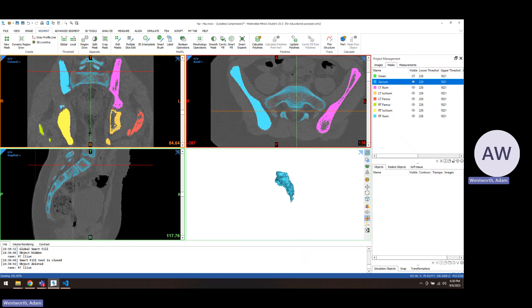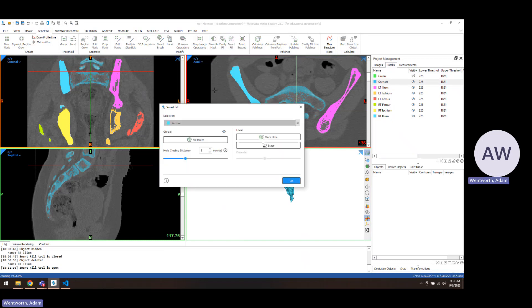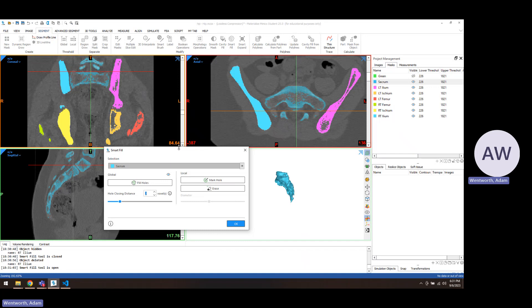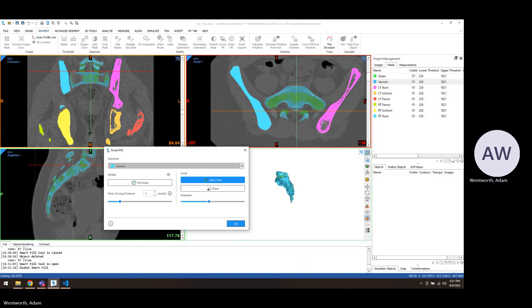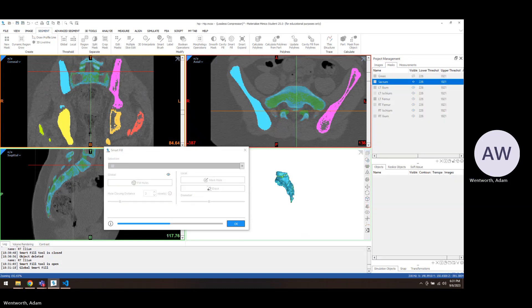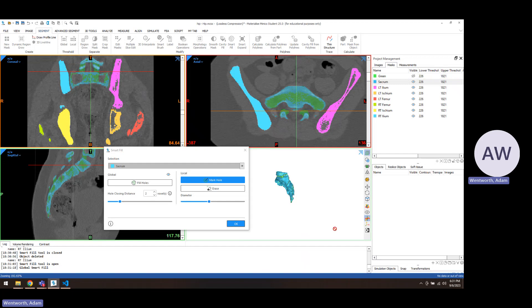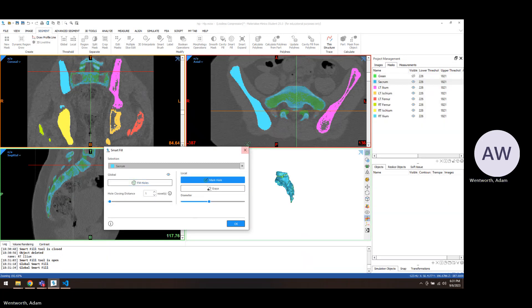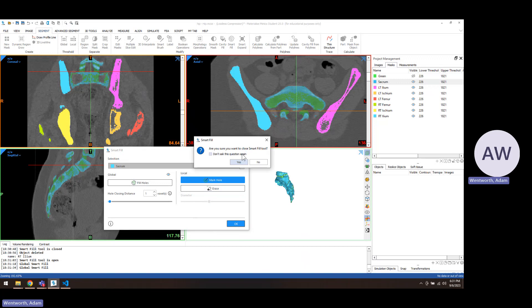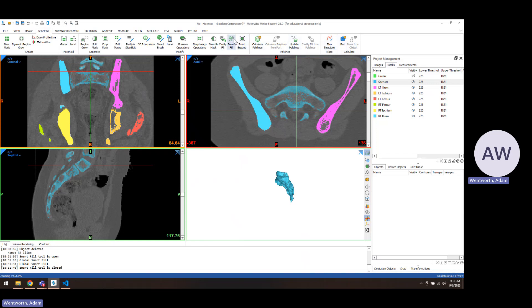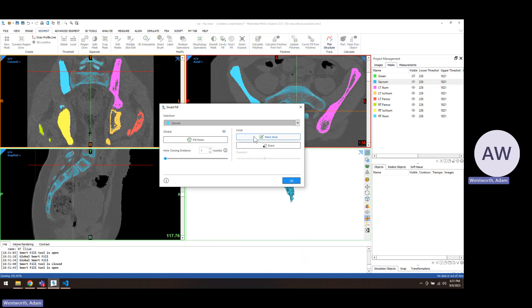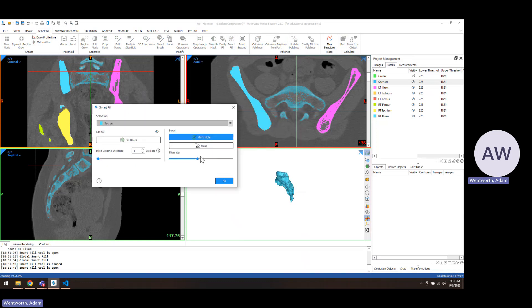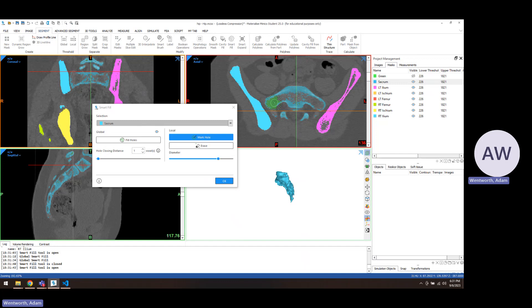The sacrum is probably one of the hardest bones to do this process with because you're getting areas that are, you have a bunch of areas that are actually where the nerves travel through the bone. And you have a bunch of this light colored bone. It's not segmented super well. So we do the best you can with a smart fill. But it's going to be challenging just because it's going to fill in a bunch of areas that aren't real bone. I'll probably cancel that. And that one would probably be more of a manual marking for each, for all the spots.